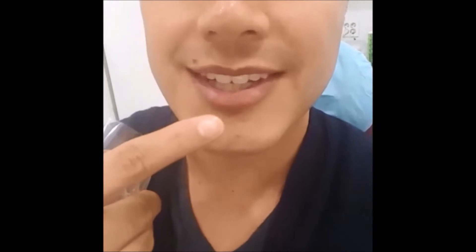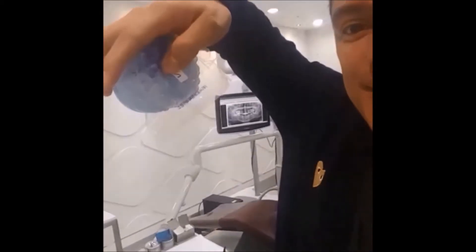I am really excited about this. Check this out. If you're up close, you can see it, but if you're just talking to me from a little far away, you can't really see it. And it doesn't really affect my tongue. I thought it would affect my tongue, but no. I'm speaking normally — it doesn't give me a lisp or anything. I really like it. I'm so excited. You're supposed to wear this like 15 hours a day, which is doable because it doesn't really affect anything.